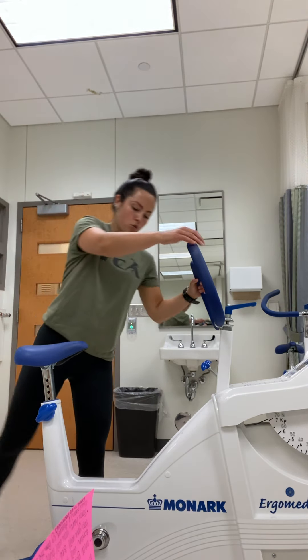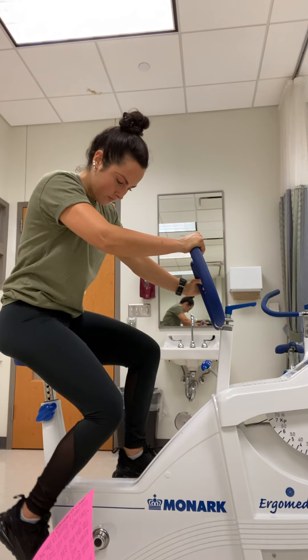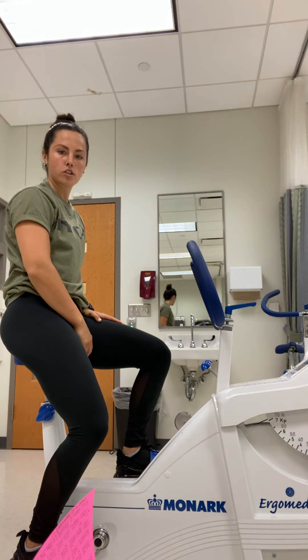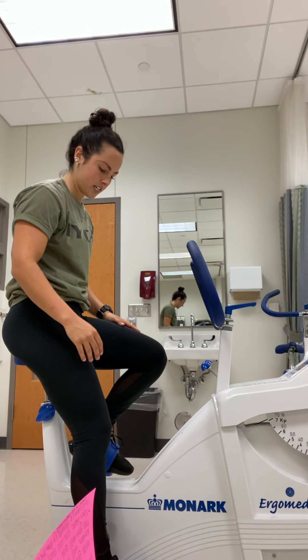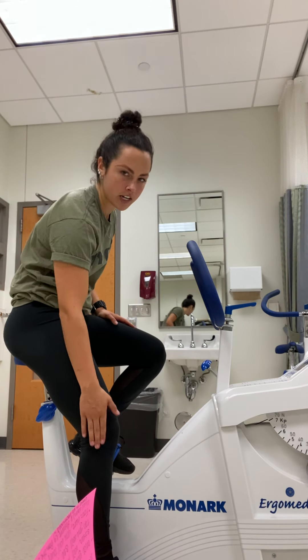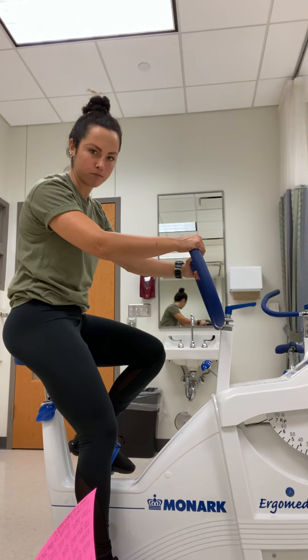Another thing to look out for: once you have the client hop on and they're seated, you'll look to see if there's about a five to ten degree bend in their knee when their leg is straight down.